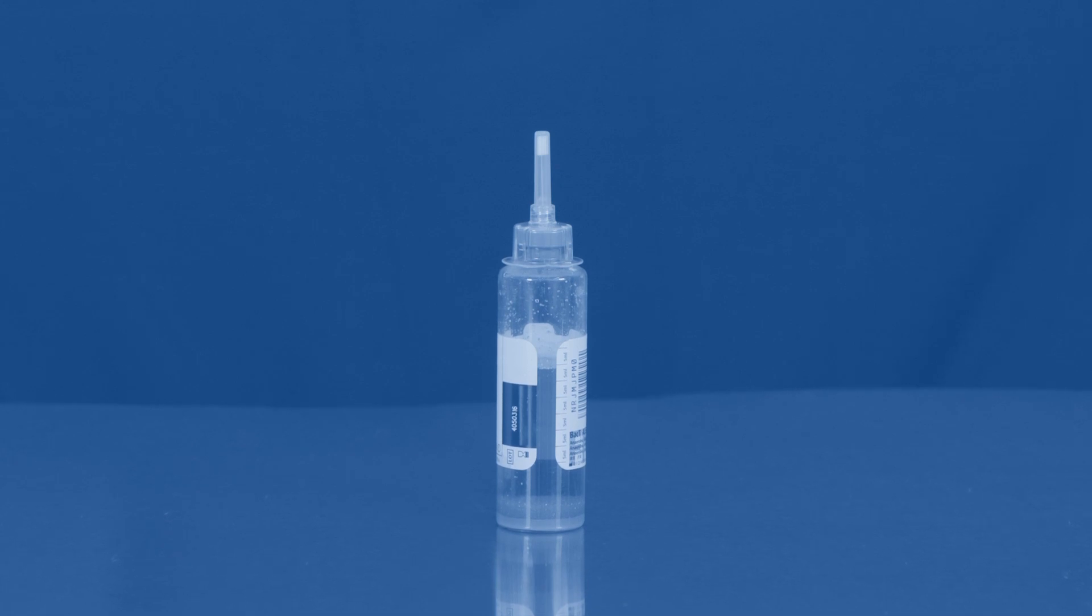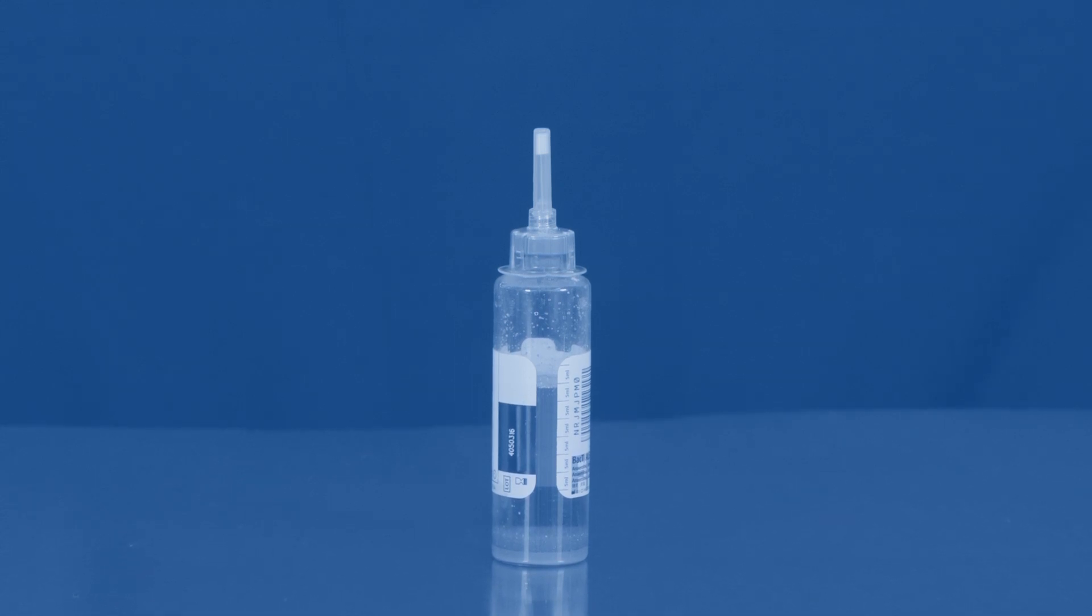Safety Subculture Unit 2 is a safe, easy-to-use device to dispense sample drops from culture bottles. That's it.